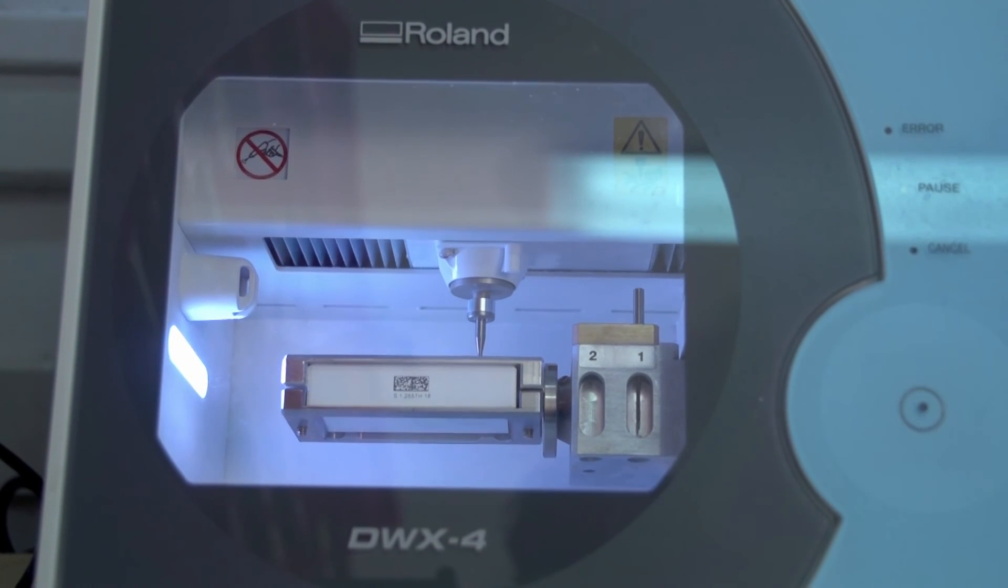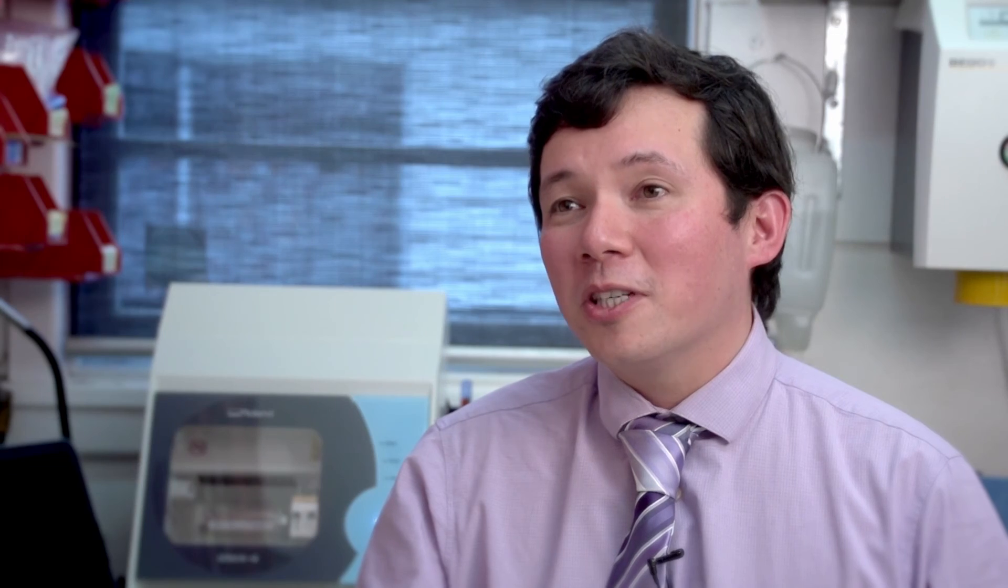So the DWX4 has been a great addition to the practice for increasing our productivity and opening up new avenues. The practice however is growing and we actually need to invest in a larger Roland five-axis mill. It's the price of success.